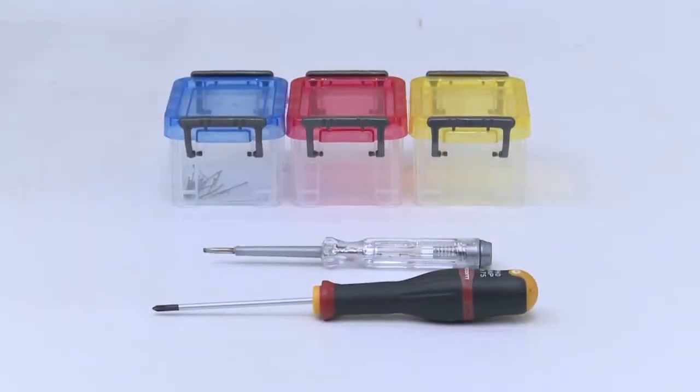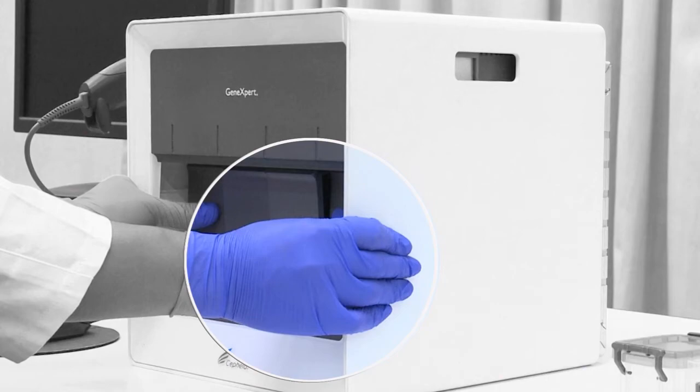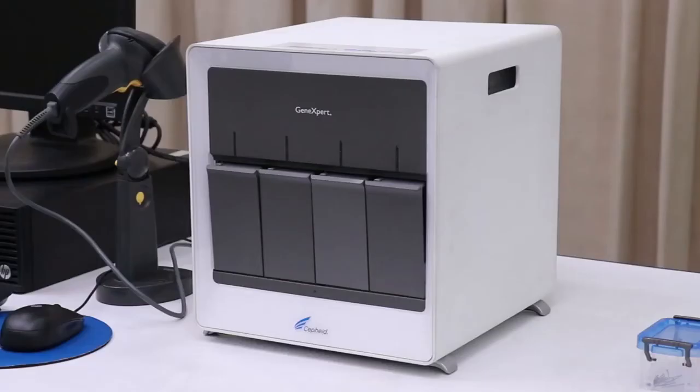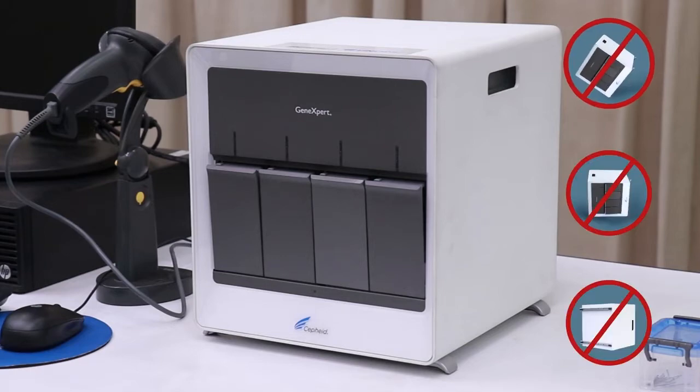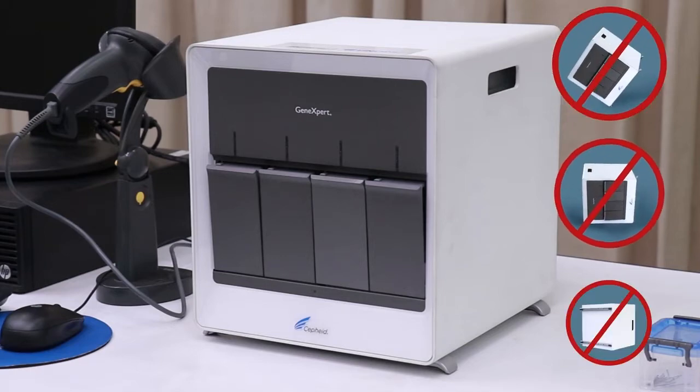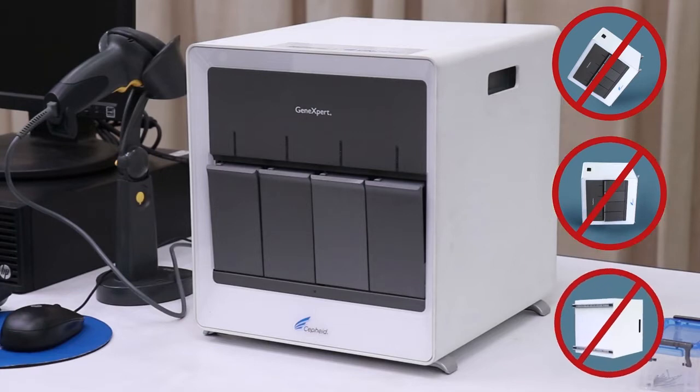For manual release, containers for screws and screwdrivers are required. Always wear protective gloves whenever handling the machine. As the cartridge is stuck inside, remember not to tilt, lie down, and turn over the machine to prevent fluid leaking inside the cartridge and contamination.